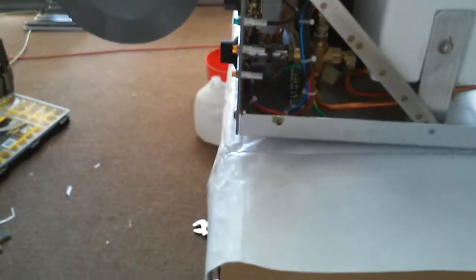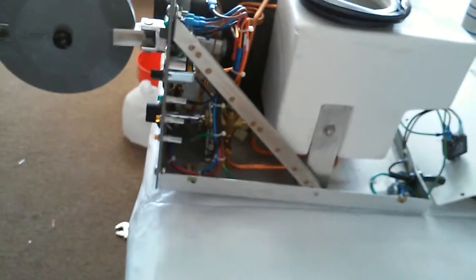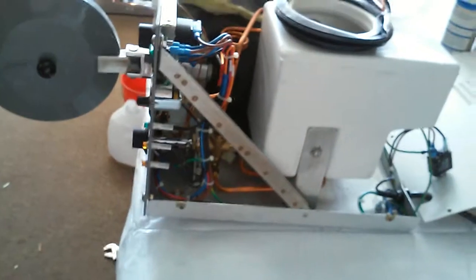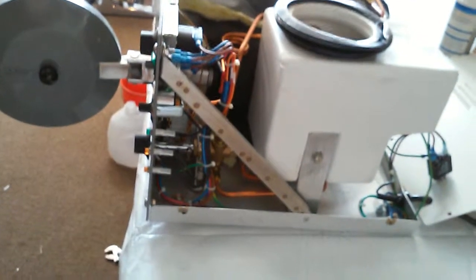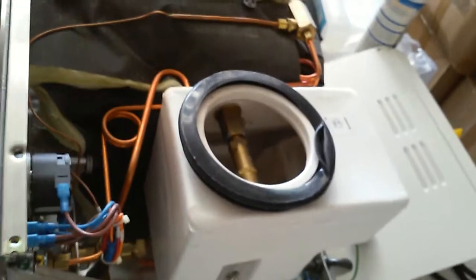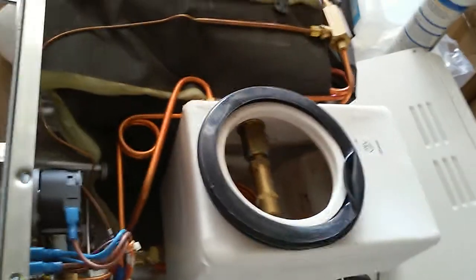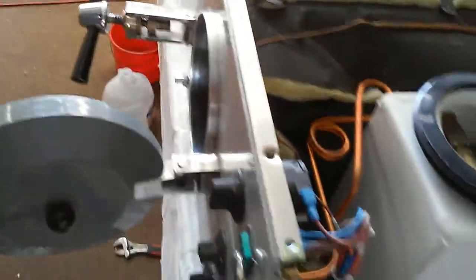In the middle is the thermostat, and on the bottom is the multiple-function valve, which fills water in and lets water out when the cycle finishes. There is also an inside reservoir, a safety valve, and those are the most important components.